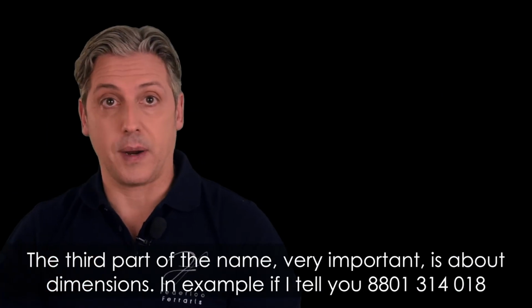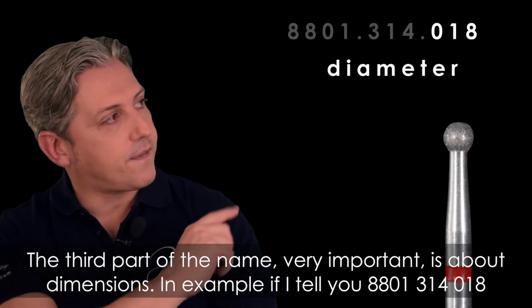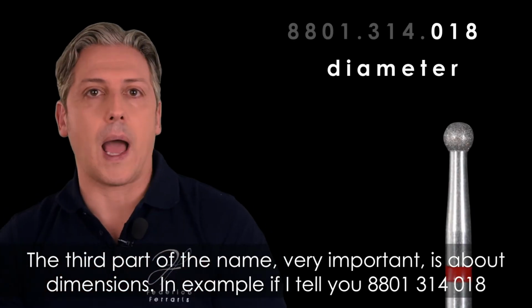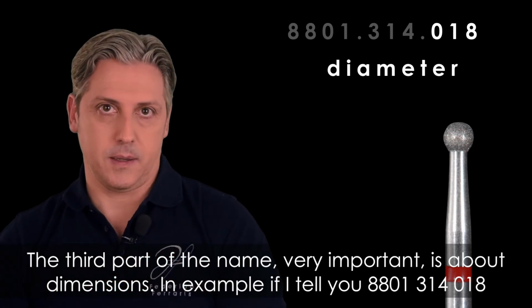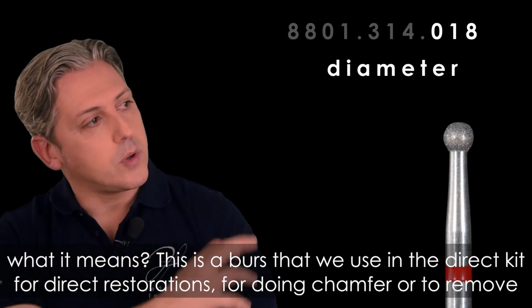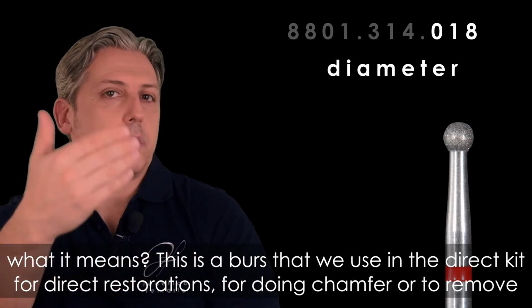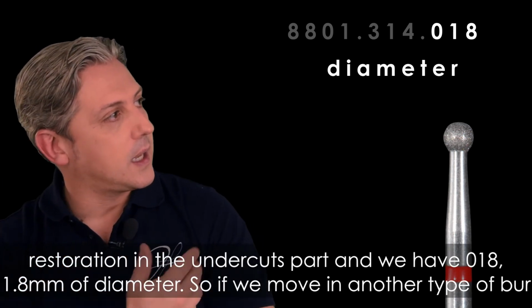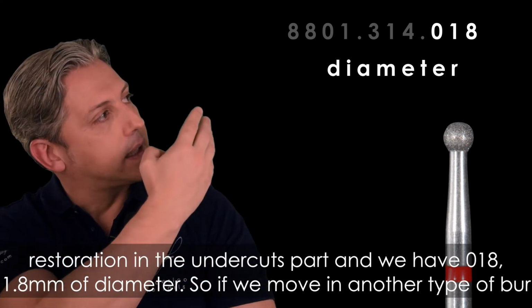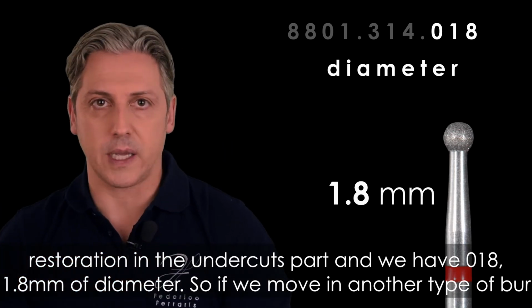The third part of the name, very important, is about dimensions. For example, if I tell you 8801 314 018, what does it mean? This is a burr that we use in the kit for direct restorations, for doing chamfer or to remove restoration in the undercut part, and we have 018, 1.8 millimeter of diameter.